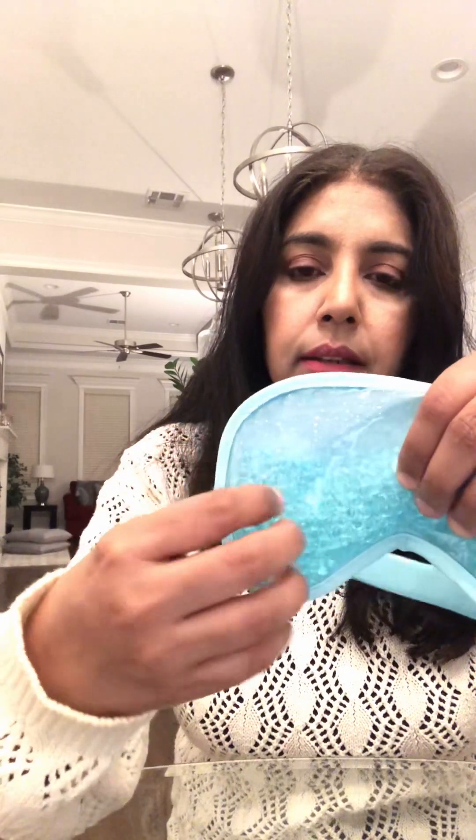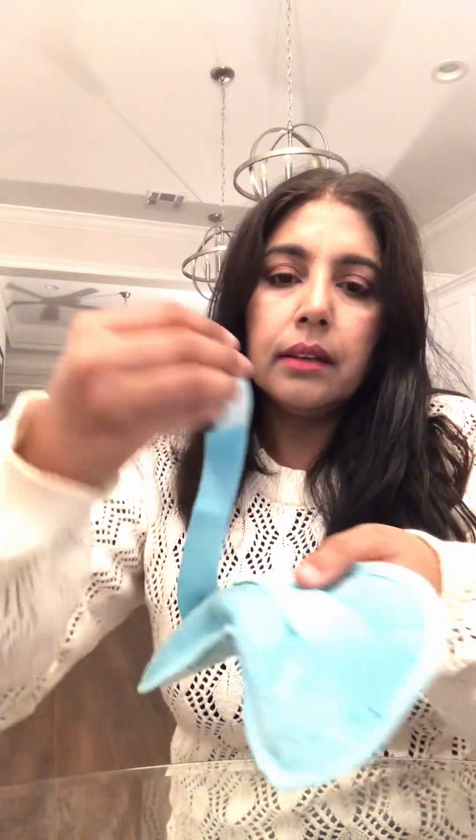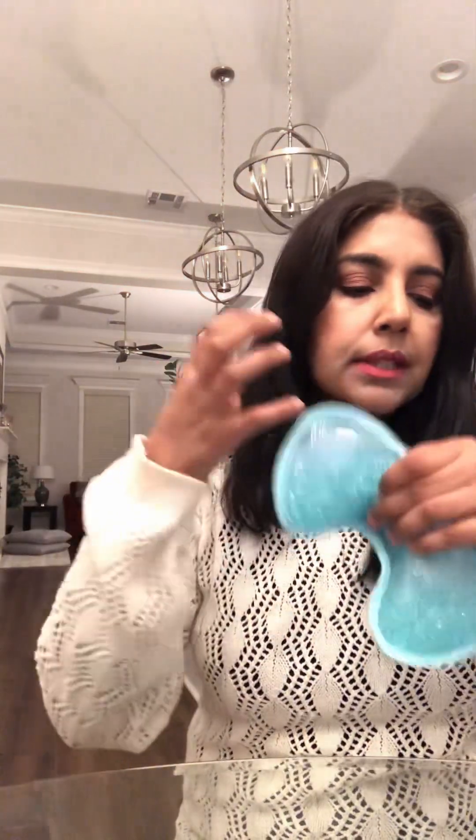This is another kind of mask — you can see the beads on it. These are the beads. You put this mask on; it also comes with a little strap that goes around your head. The compression from this beaded mask is going to open up the clogged meibomian glands that come from under the lids — always remember that.